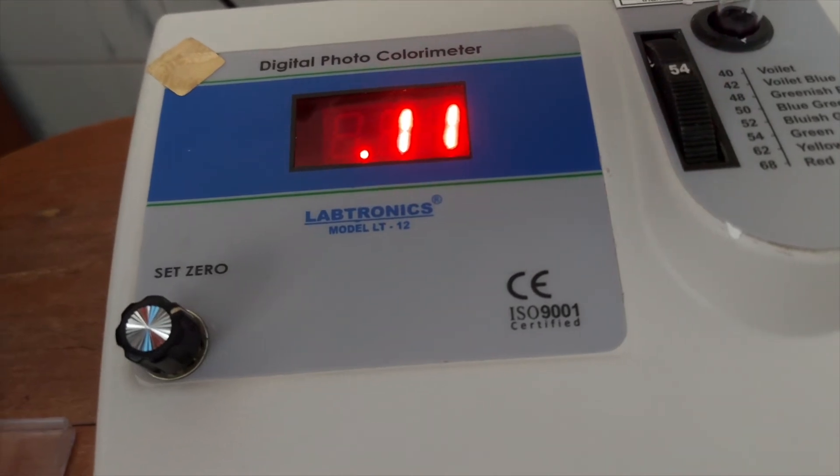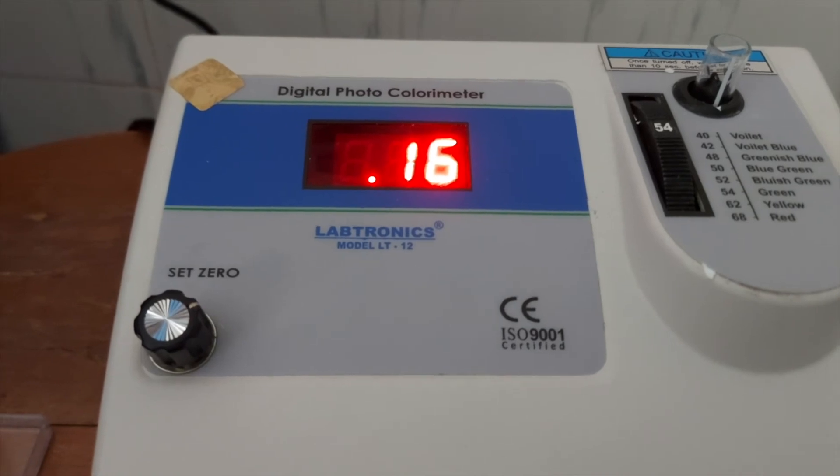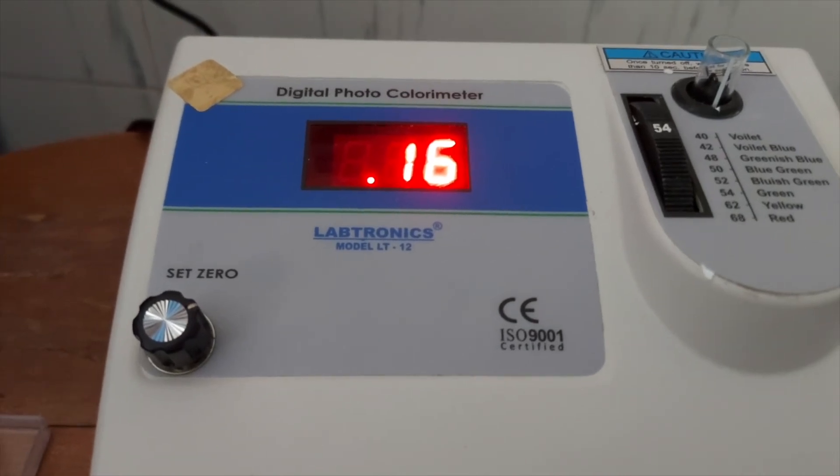Let's take the reading for the calcium standard. The absorbance of the calcium standard is 0.16.